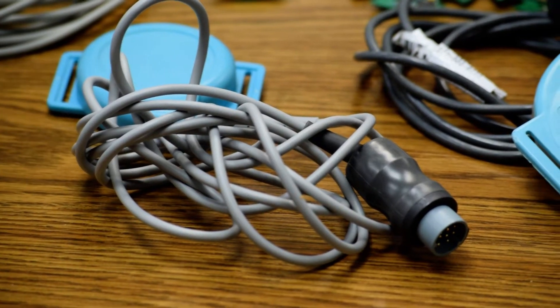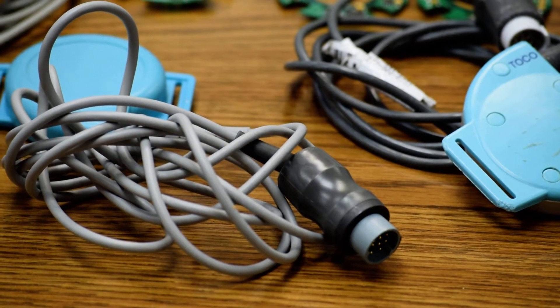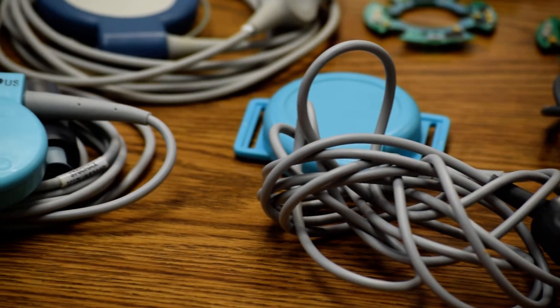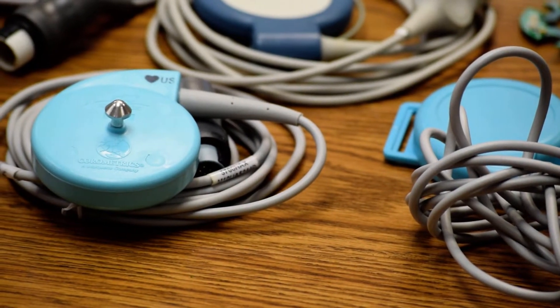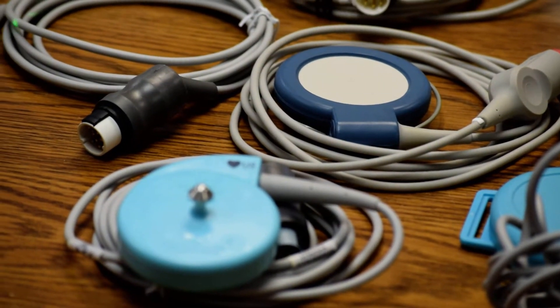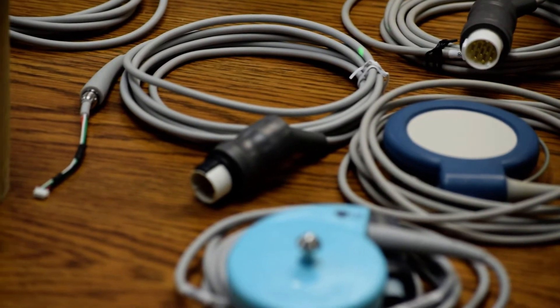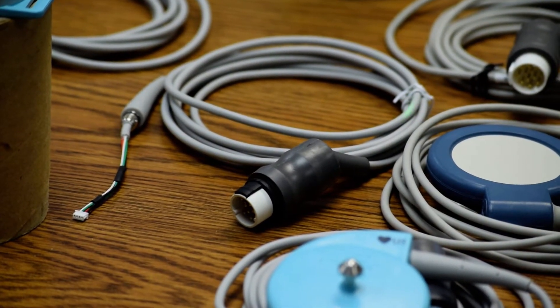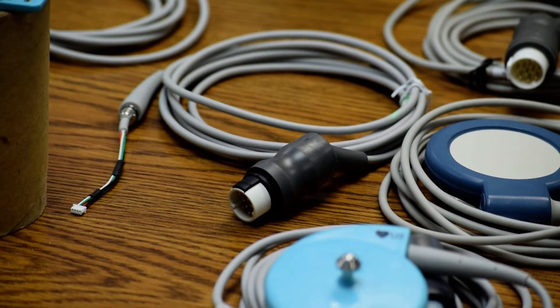On left, here you can see various transducers with properly coiled cables. Especially, this OEM cable has been shown separately. Almost about 6 inch diameter circularly coiled, using twist tie to keep it together.